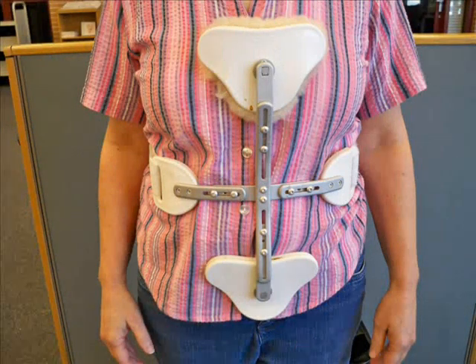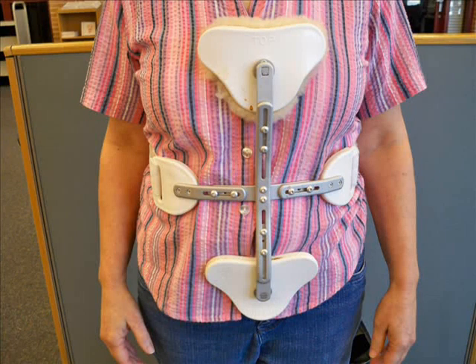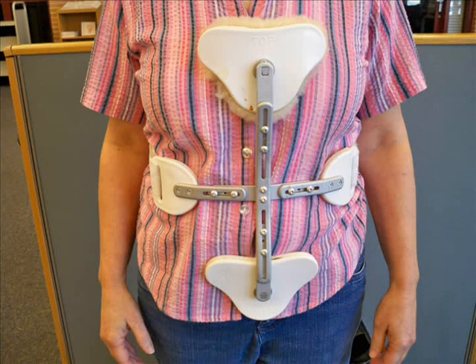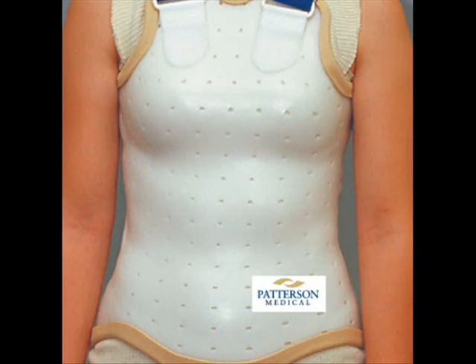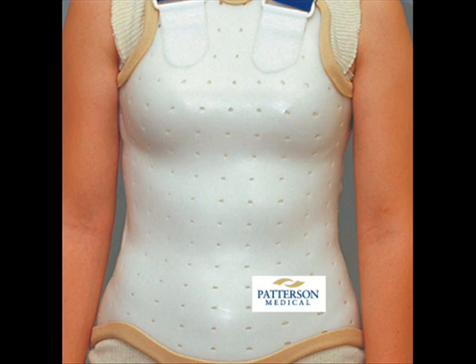This is a CASH orthosis, which stands for cruciform anterior spinal hyperextension. Cruciform means cross. This orthosis is used to restrict flexion. A molded plastic thoracolumbosacral body jacket is a bivalve type of orthosis that would provide almost total motion control of the spine.